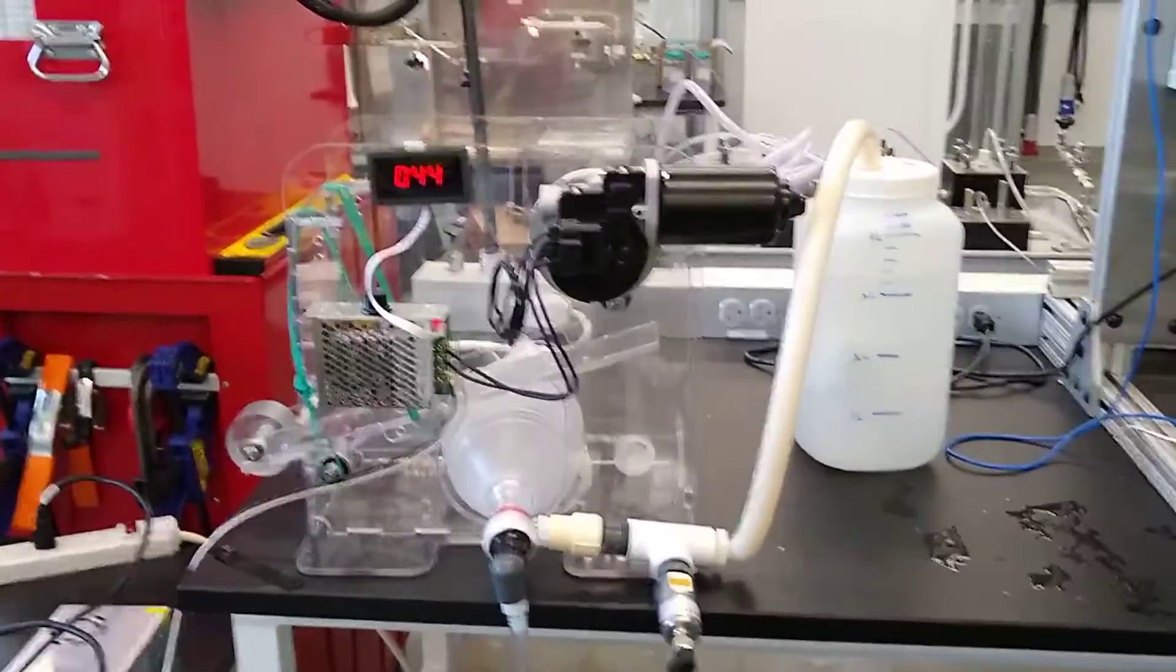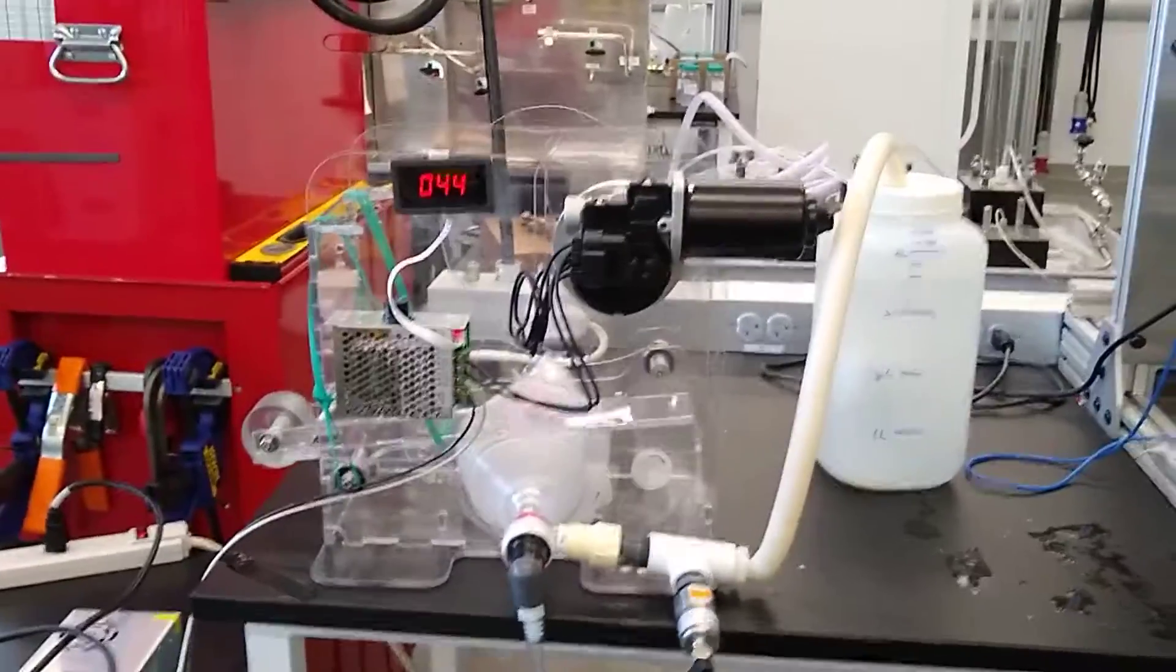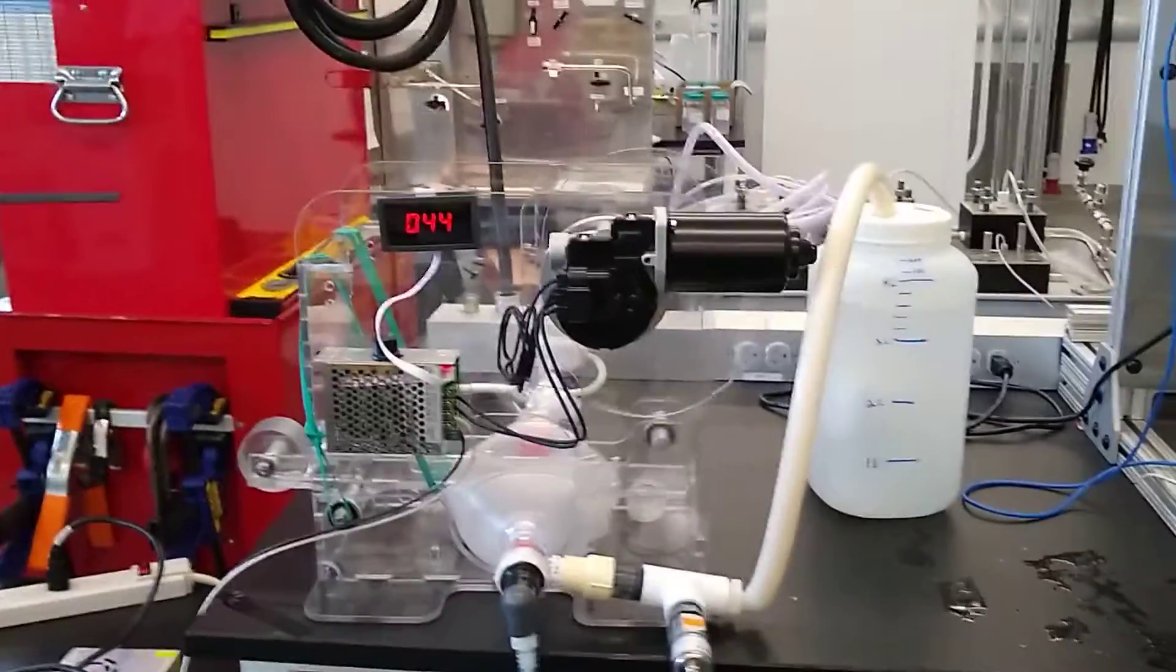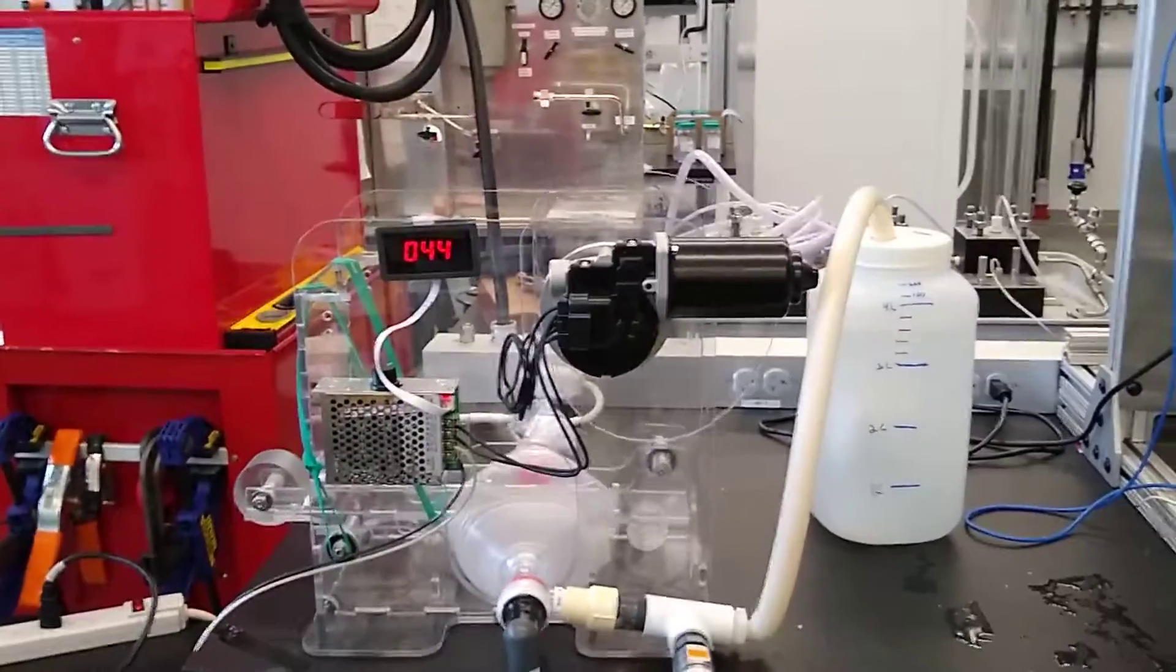The next steps are to actually build a similar system out of metal that could be mass produced, in case we get to the point where we need such ventilators.